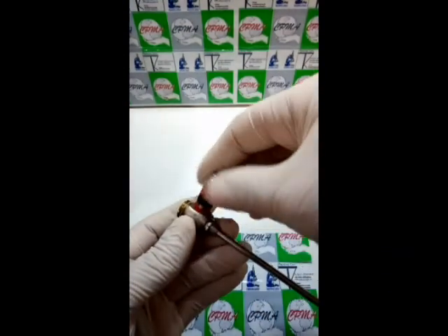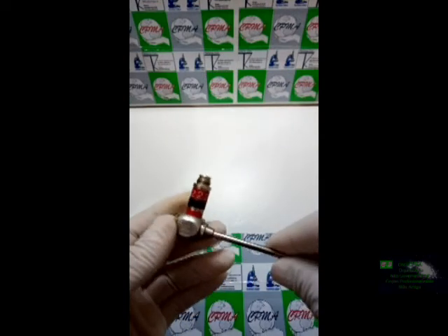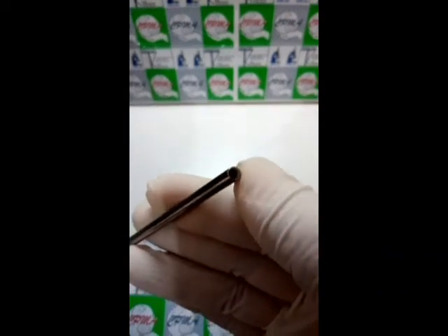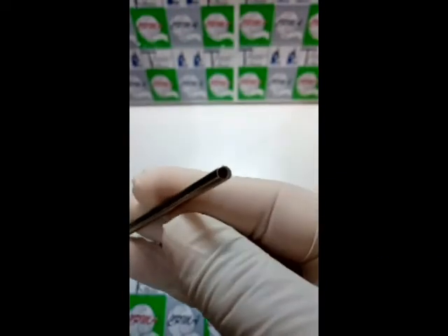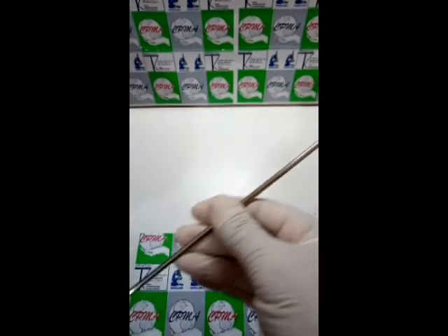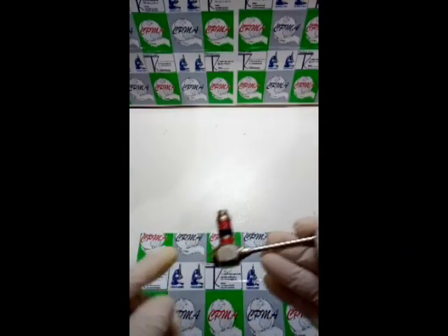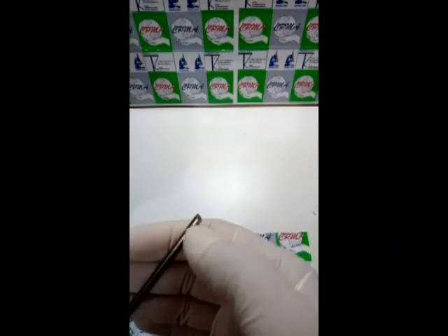Antes de calafetarmos, nós vamos soltar esse conjunto para observar o que está aqui, por ter passado da mão de muitos pseudos técnicos, então nós ficamos meio desconfiados. Também descobri que tem uma pequena ranhura bem na pontinha aqui da distal. Isso aqui é uma Window — é um vidro, é uma pequena lente, a qual nós chamamos de Window. Essa janela tem que ser substituída, porque é capaz de, no momento de nós trocarmos as rodelens, aparecer uma mancha e te induzir ao erro. Então, esses são os defeitos: o problema da rosca, o problema do parafuso, o problema dessa pequena infiltração, e agora descobrimos o problema aqui da Window.